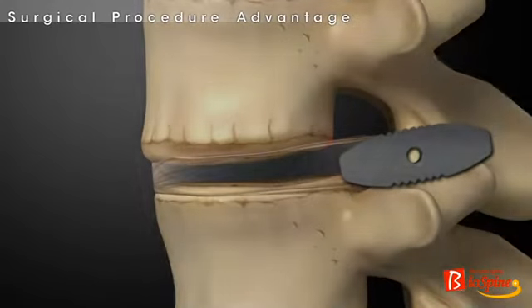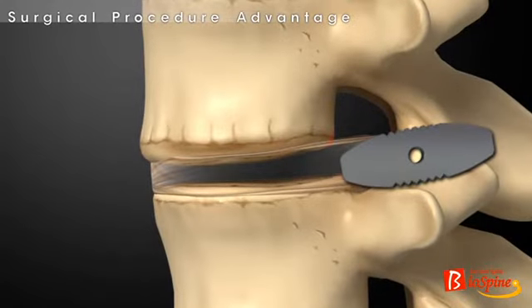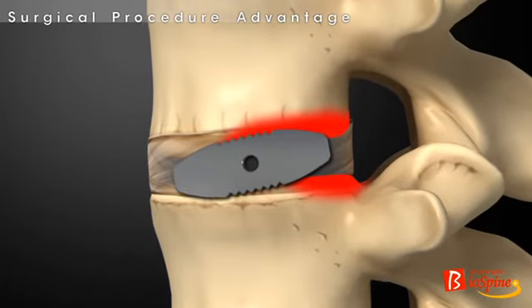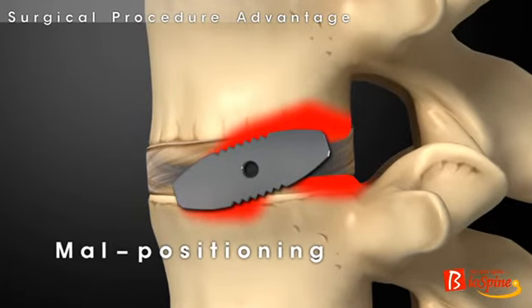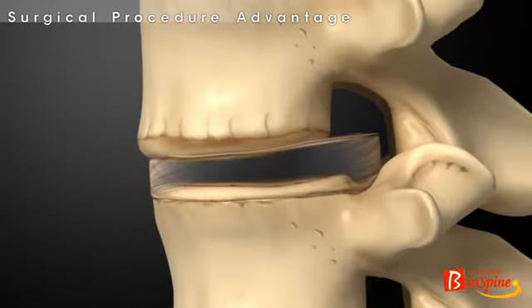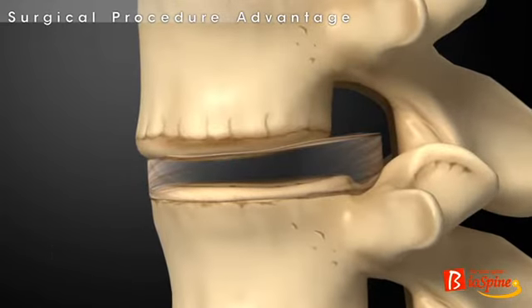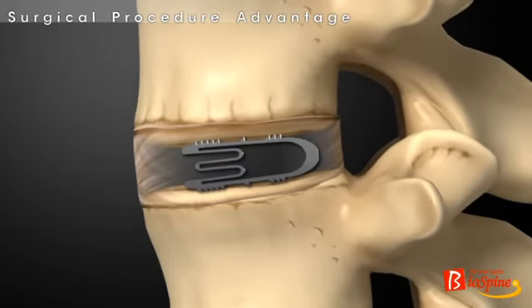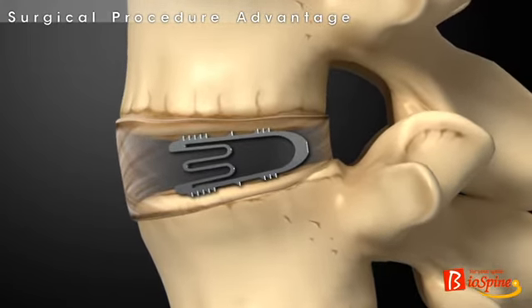However, since traditional block cages cannot lower the height of the cage, they impair the end plate of the vertebral body or cause such problems as malpositioning in the process of insertion. On the contrary, thanks to the shape memory effect, the flexible cage can minimize the impairment of the end plate of the vertebral body and prevent such problems as malpositioning.